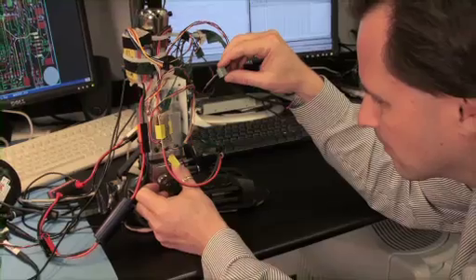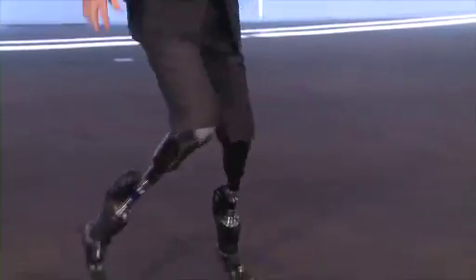My name is Hugh Herr, I'm an MIT professor, and I invented these Bionic limbs. With Bionics, I am no longer disabled. I can run, dance, and skip.